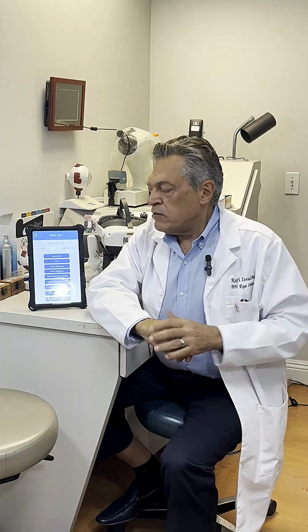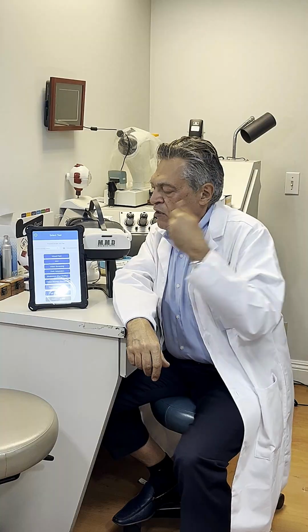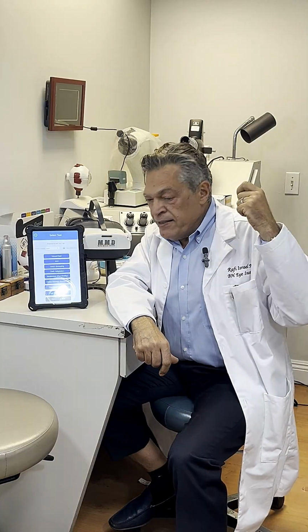So this is just a brief video to let you know that this machine does a lot more than just a visual field. We were the first one in the market with this technology, and we still have the patent on this. But now the machine has gone way beyond visual fields, and it can offer a lot more to the doctors and the patients to diagnose patients much faster, much better, and be able to follow them over time and have reliable, reproducible reports, so you can see every time a patient comes in whether they're getting better or worse or what their standing is.